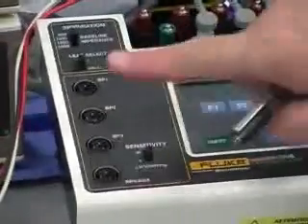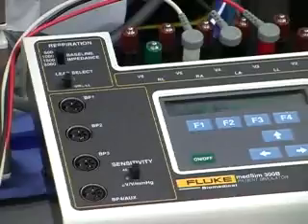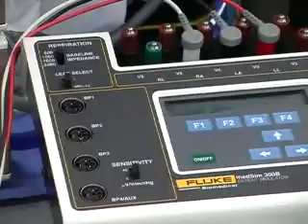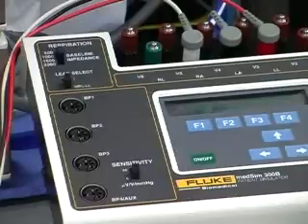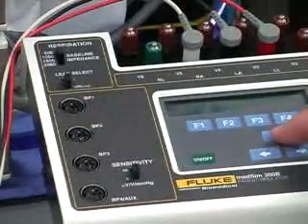And with that, there's the switch position here. Best to keep it down here on 5 microvolts. Most of the transducers are 5 microvolts. Very few are the 40. Earlier Philips, which then were HP and Agilent, had some transducers that were 40 microvolts, but very, very few. All the ones they present now are 5 microvolts. Actually, some of the newer systems only are 5 microvolts. So down there is always a safe selection. Okay.